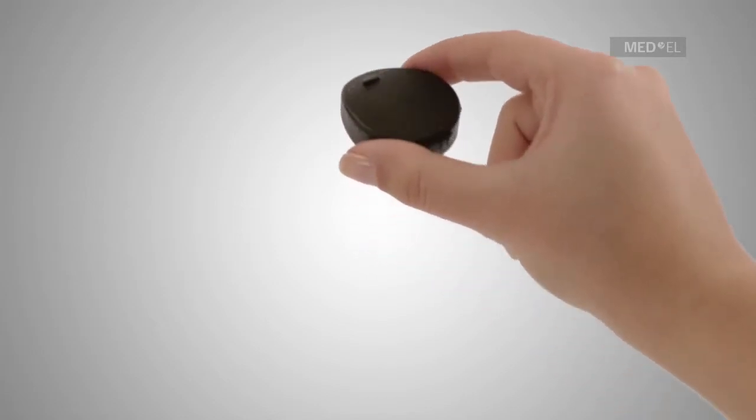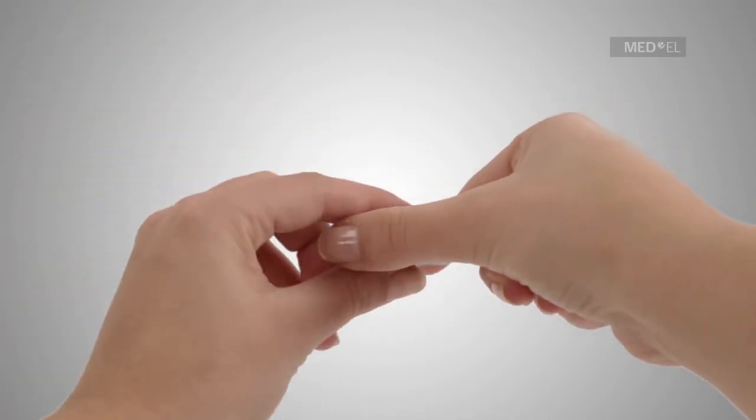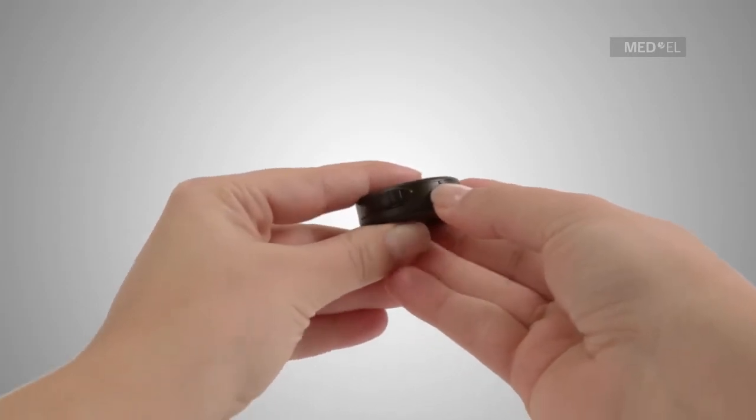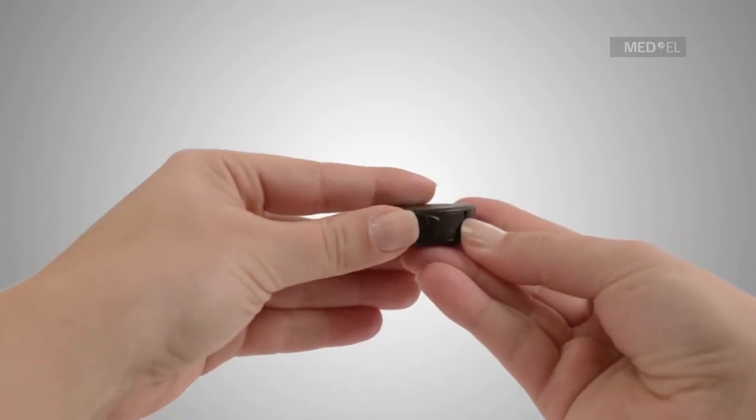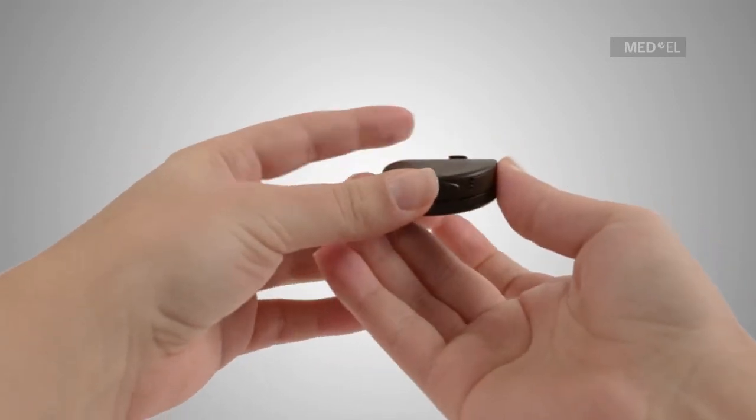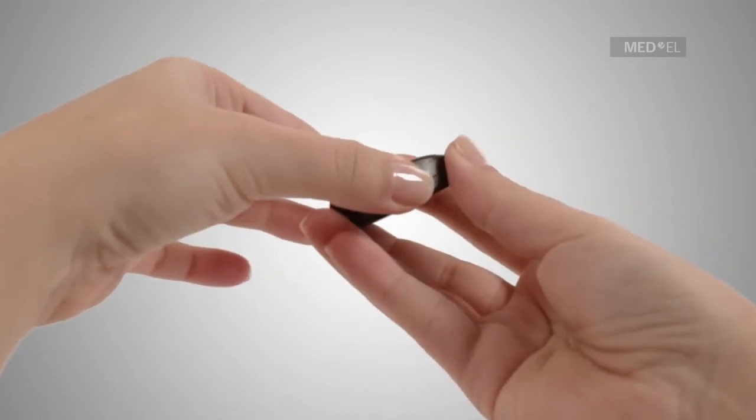To replace the batteries, remove the battery pack from the control unit by first unlocking the rondo. To unlock the rondo, use your fingernail to push the release lever down while sliding the switch to the unlock position at right.